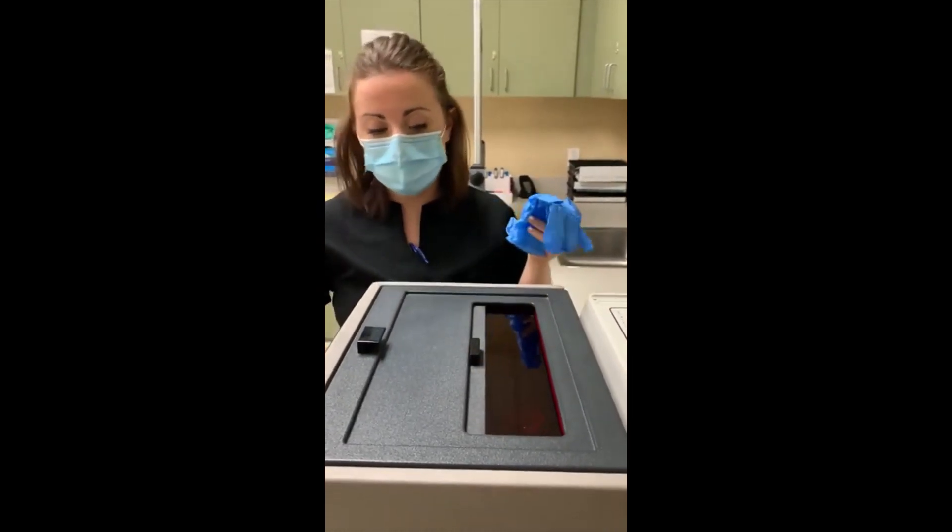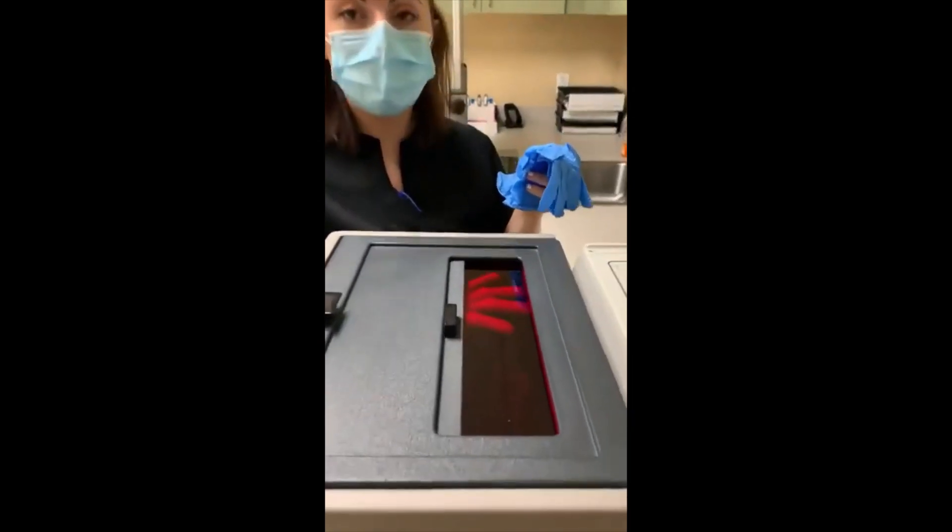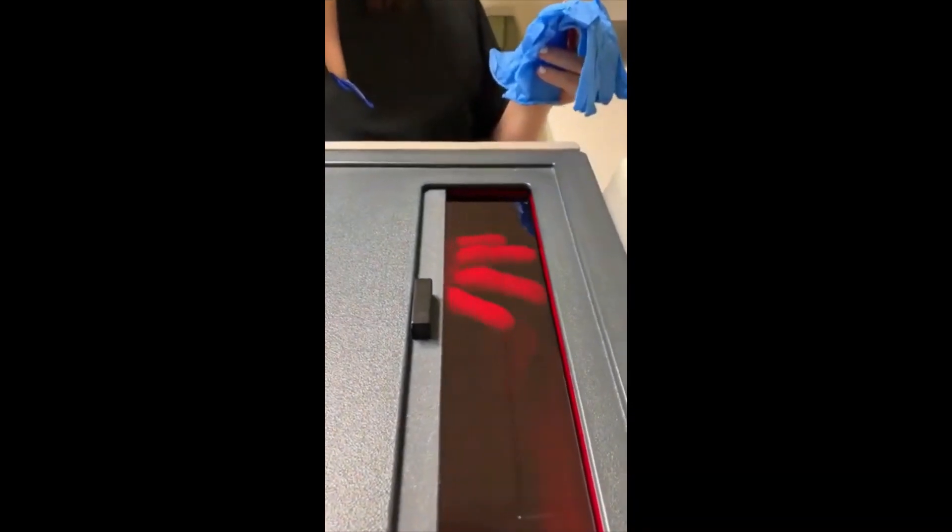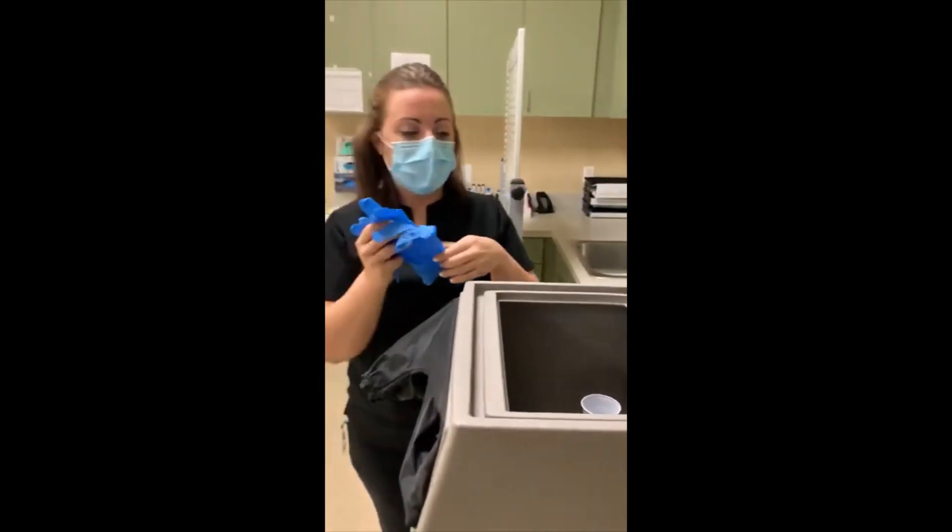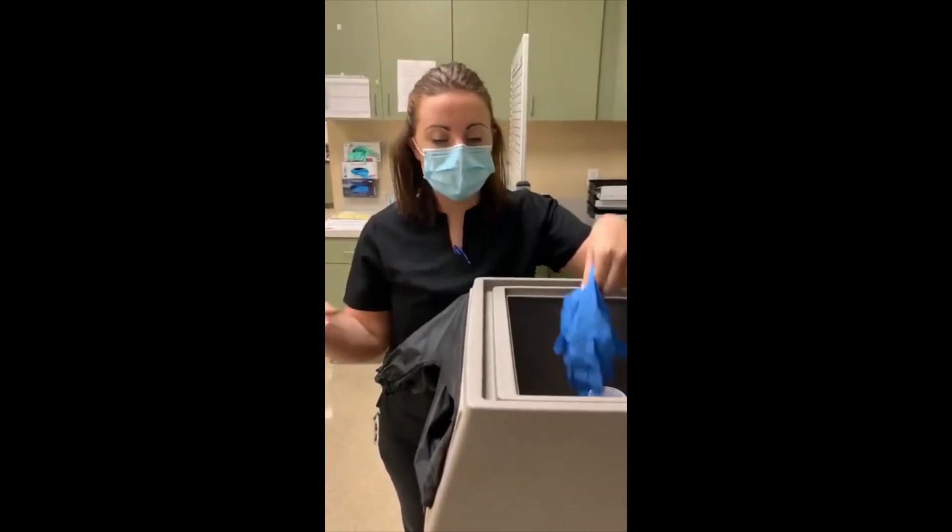So that when you put your hand through you'll be able to see what you're doing through this little window. I'm gonna close this and open this up, and then you can either put gloves in here and put your hands in, or because your hands are clean and the gloves are clean, you can go ahead and put gloves on beforehand.